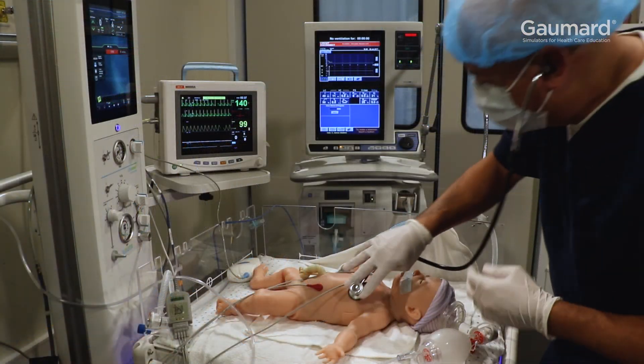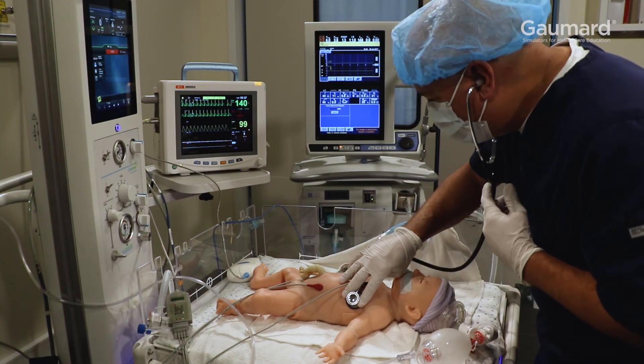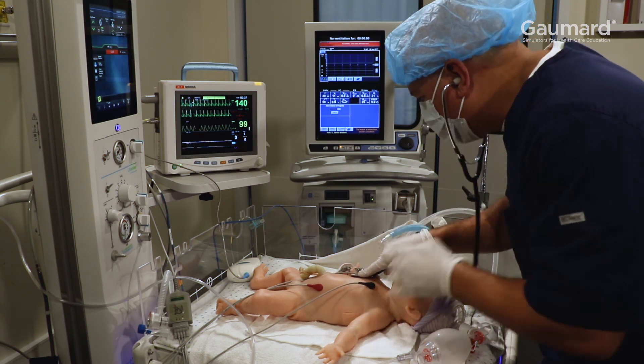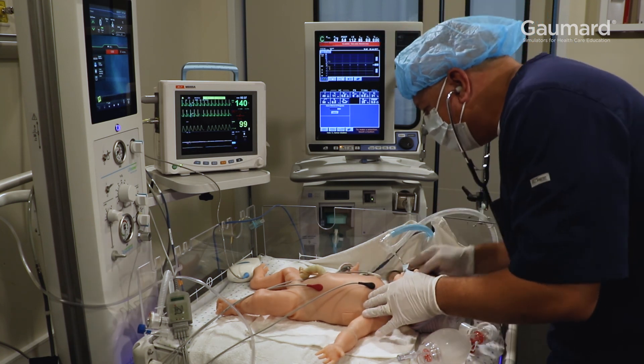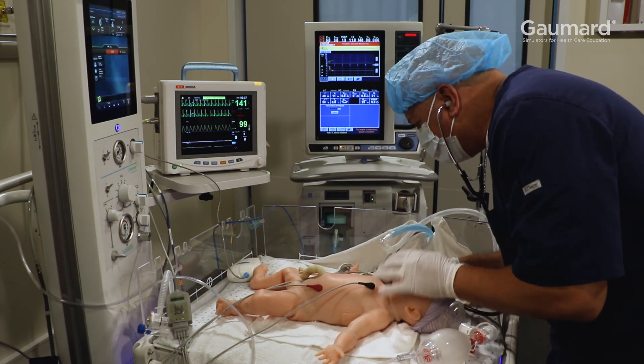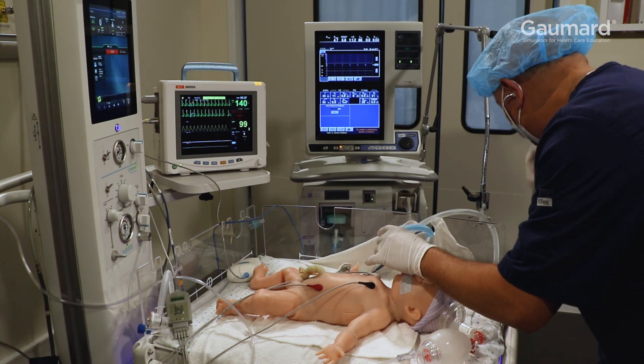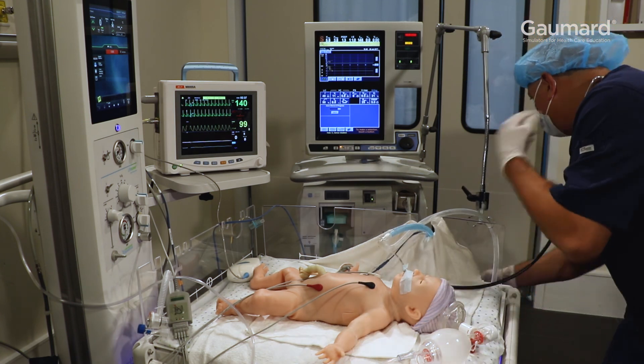This true-to-life functionality is designed to increase realism and improve skill retention by creating training opportunities in real environments with native equipment.